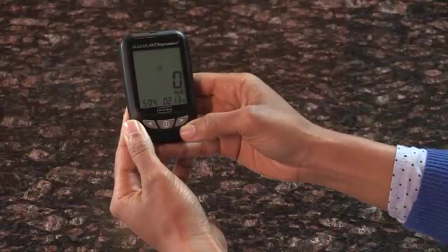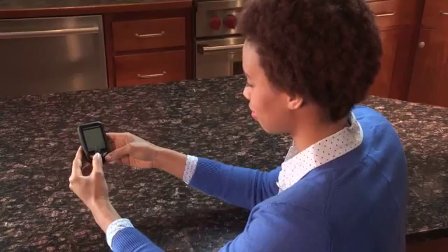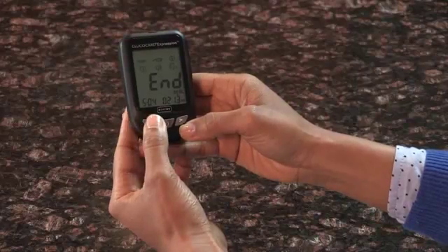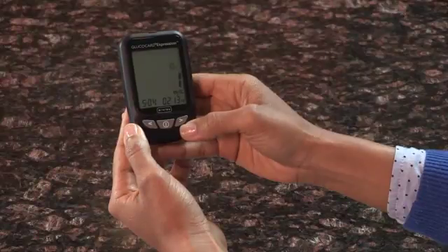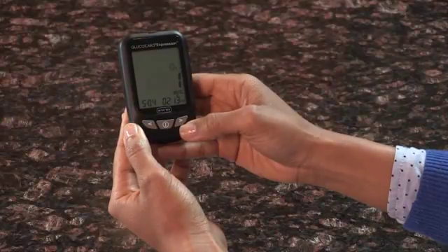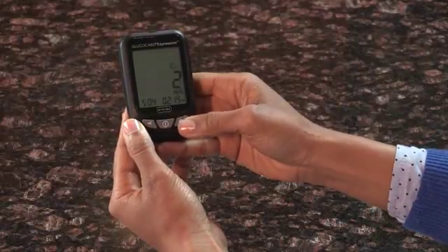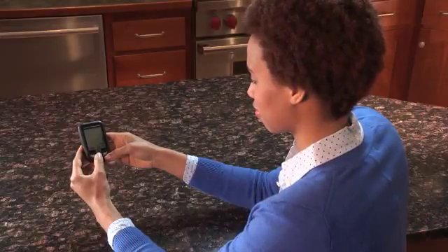Once you have determined the suitable volume, press Enter to exit volume setting. Your GlucoCard Expression meter has a bilingual voice function that can be used as a verbal aid for using the meter and hearing test results. To set your language preference, either English or Spanish, press the Enter button to enter Setup Mode. Press either the left or right arrow until the Talking icon is highlighted and begins to flash. Press Enter to enter the language setting. English is the default language and can be changed by pressing the left or right arrow. Select 1 for English and 2 for Spanish. Press Enter when finished to exit the Language Setup screen.